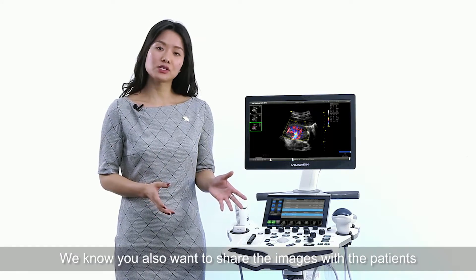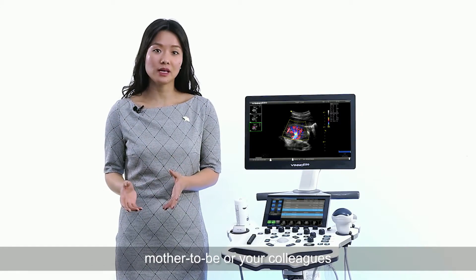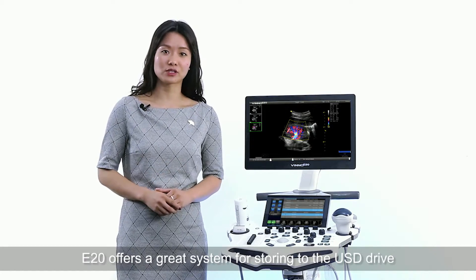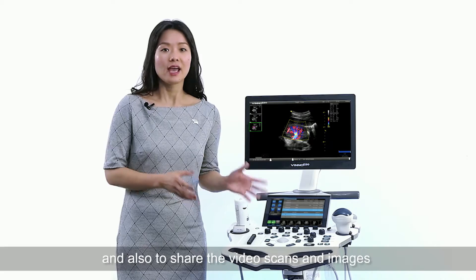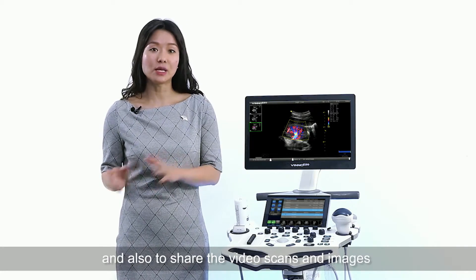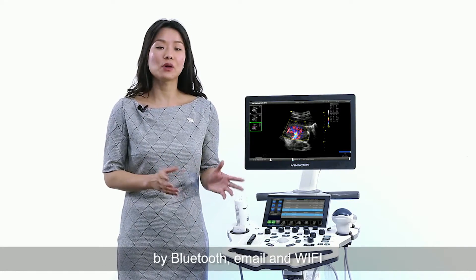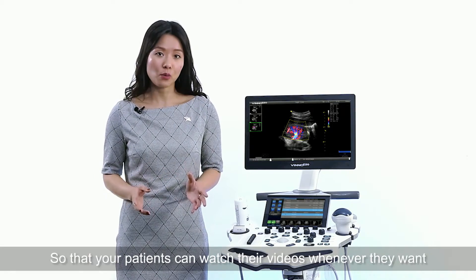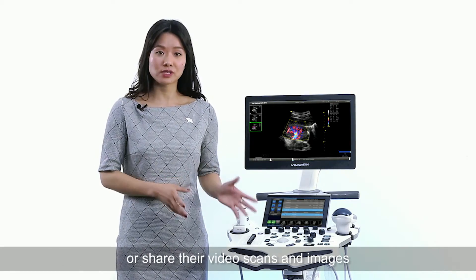We know you also wanted to share the images with your patients, mothers-to-be, and your colleagues. E20 offers a great system for transferring to the USB drive and also to share the video scans and images by Bluetooth, email, and Wi-Fi. So that your patients can watch the videos whenever they want and also share the video scans and images with their families and friends instantly online.